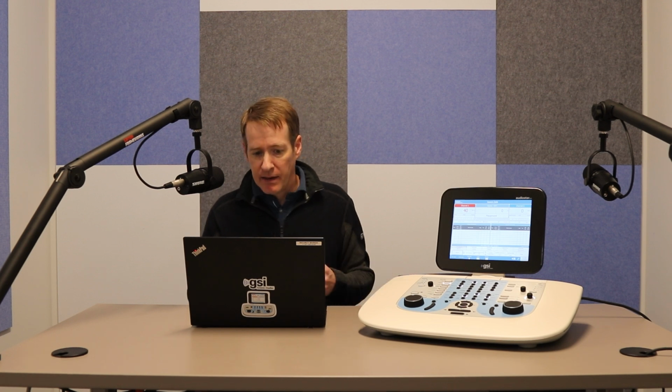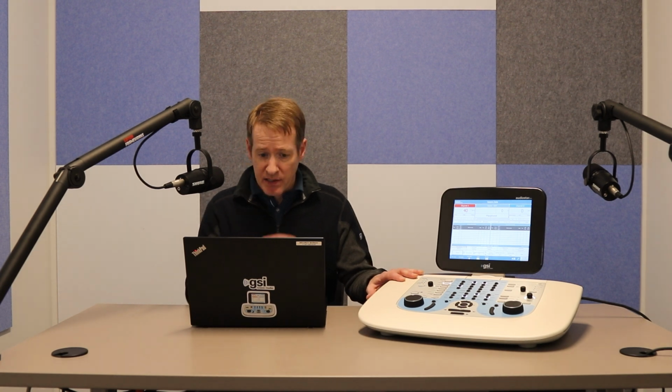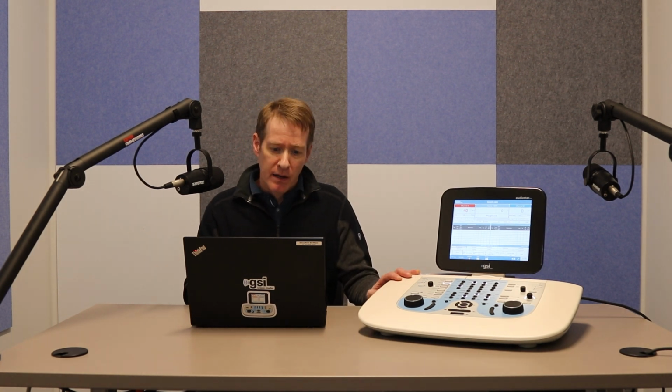Now, the other thing that we've done is we've added the ability for you to go through all the different autoplay features and utilize them directly on the device. So, for example, by default, the device will come with what we call wait for score when you're using autoplay. So you would hit the interrupt button with your word list on, and it's going to wait for you to score it before advancing to the next word.